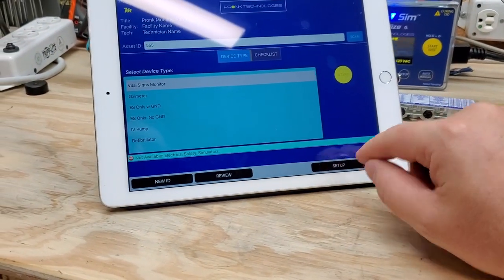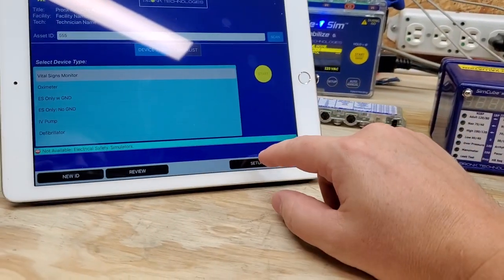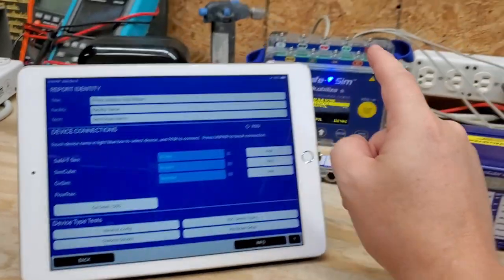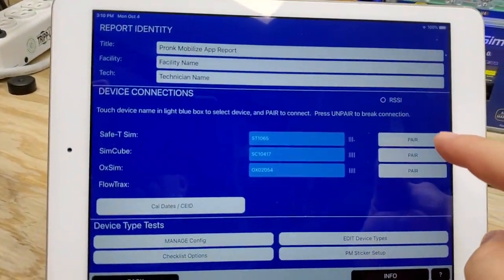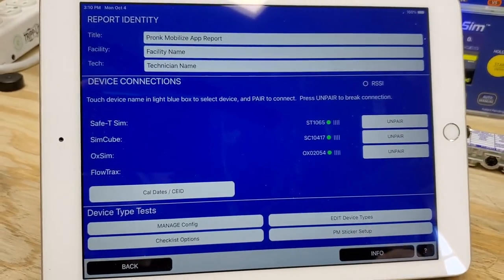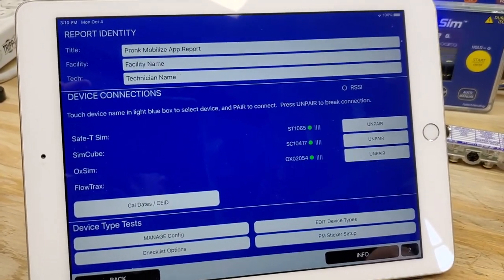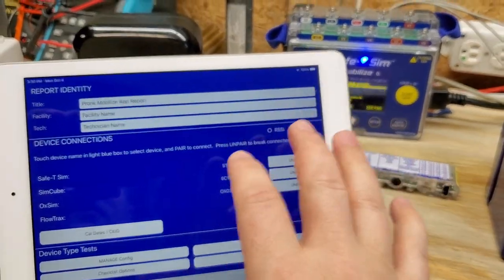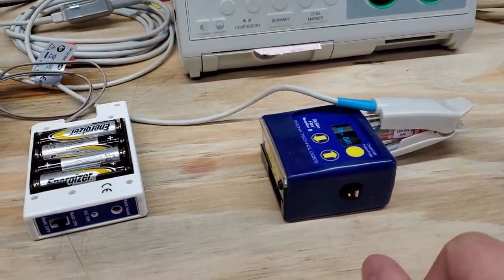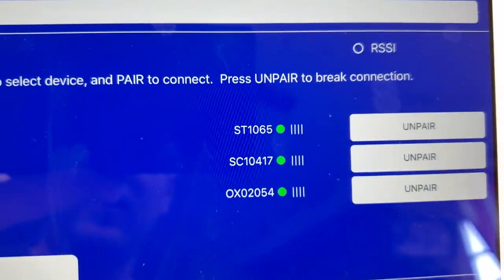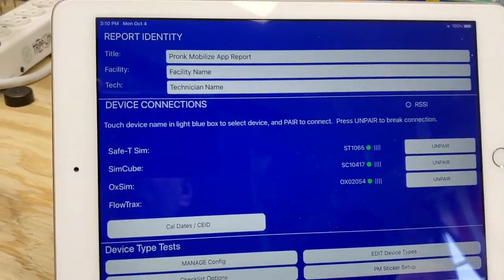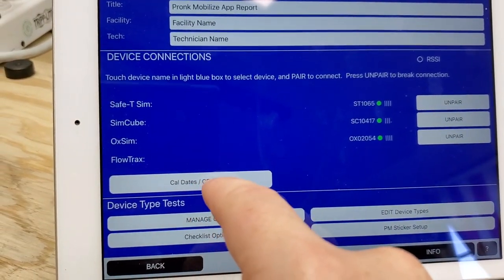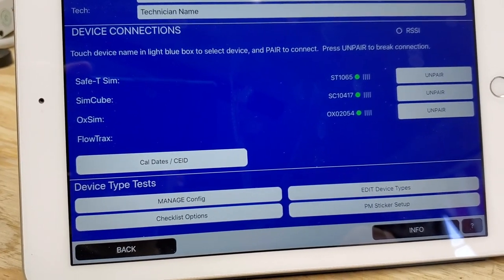One of the first things you want to make sure that you do is recognize your components and make sure that they're paired. I've got three devices right here. It can see three devices, but they're not currently paired. Pair, pair, pair. They do operate on Bluetooth spectrum, so they have to be paired just like your headphones. And now this guy is in control. You got green dots right down there. You can also see the calibration dates of the devices. Very cool.